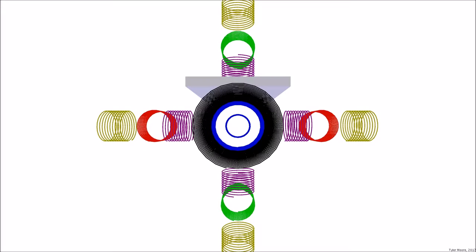An MR scanner is primarily comprised of many electromagnetic coils. This animation will be used to show the actions of these various coils during an MR, so let's review the different coils.